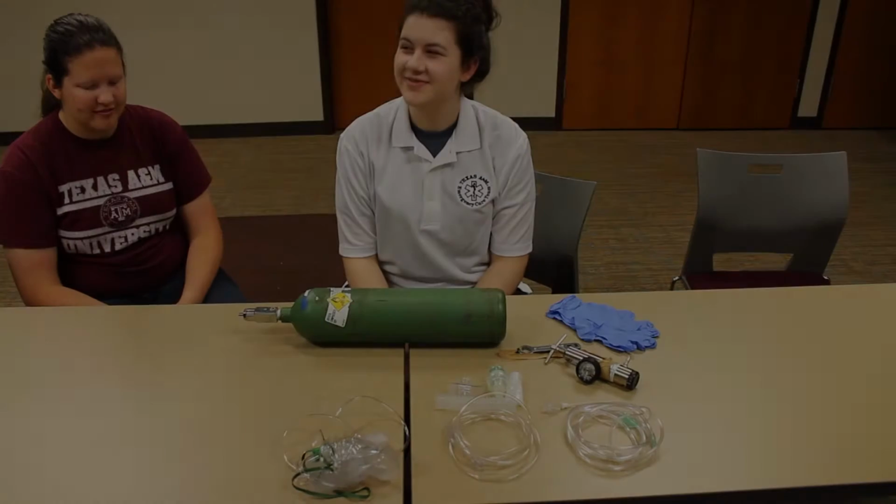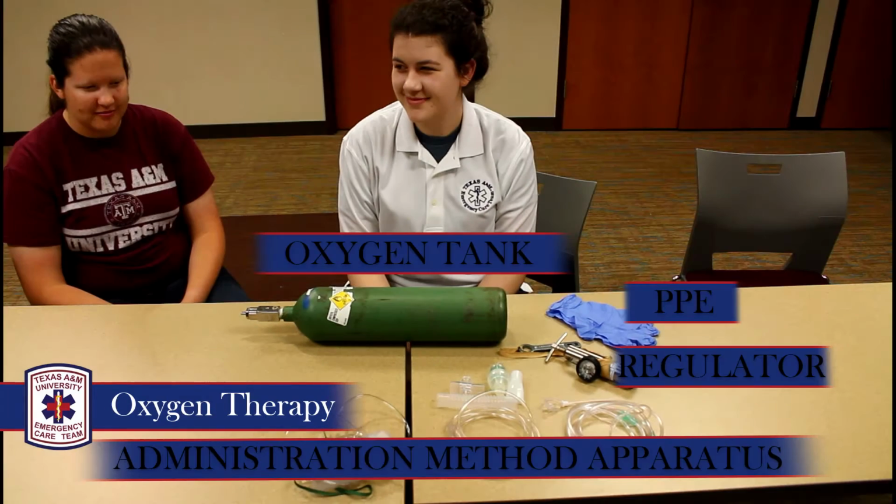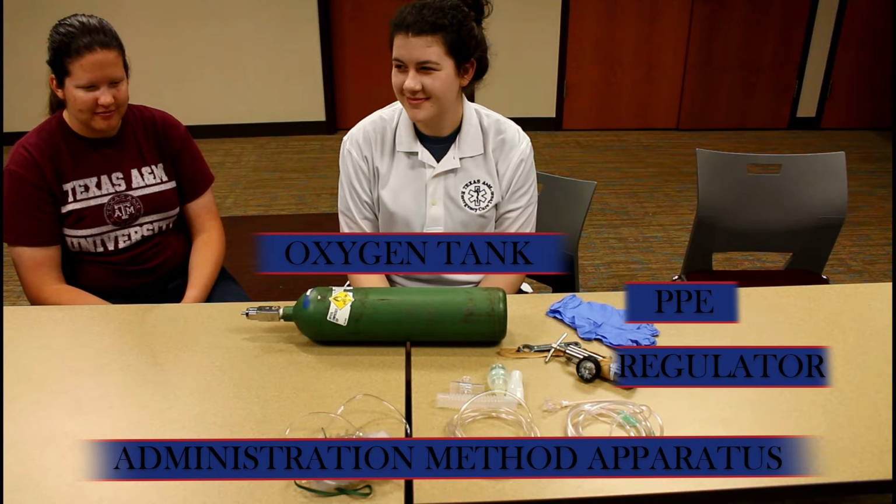In this video, we'll be taking a look at oxygen administration therapy. Please take a moment to familiarize yourself with the required equipment, including the oxygen tank, personal protective equipment, regulator, and the appropriate administration method apparatus.